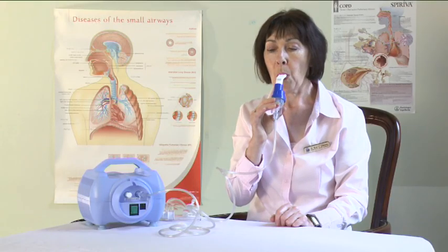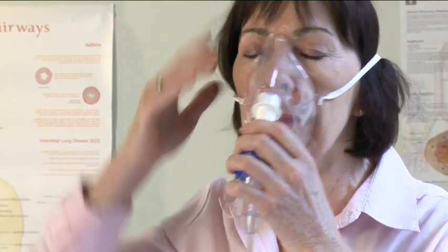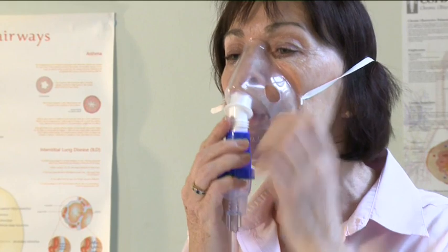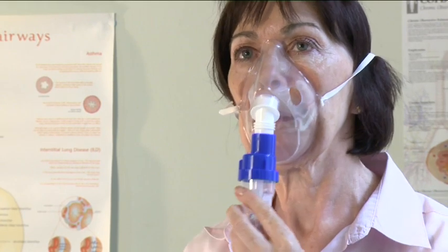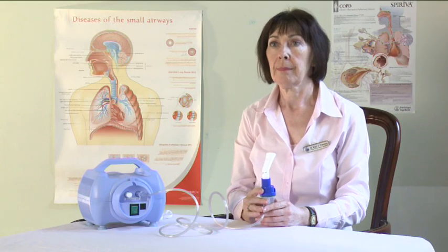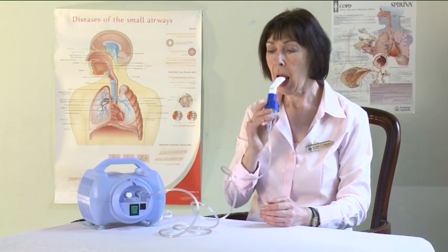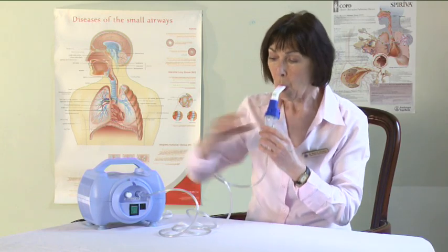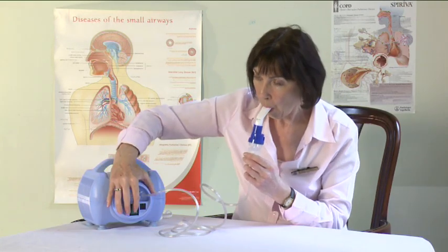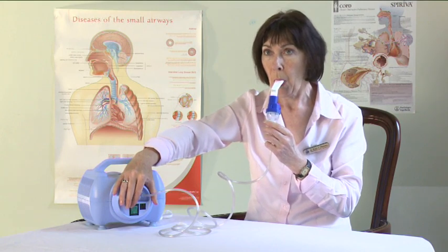When using a mask, be sure it fits well so the mist doesn't get into your eyes. Check with your doctor or nurse as to which type is most suitable for you. Gently exhale. As the mist starts, inhale slowly through your mouth. Take over three to five seconds for each breath and continue breathing normally.